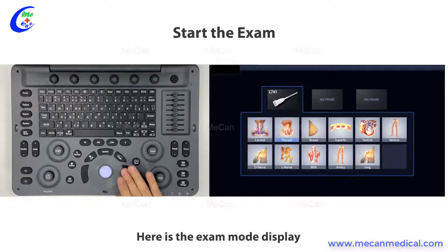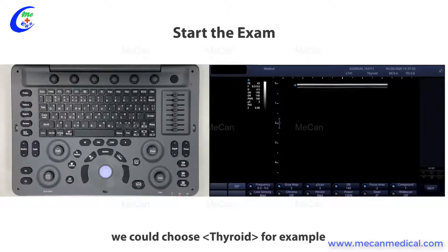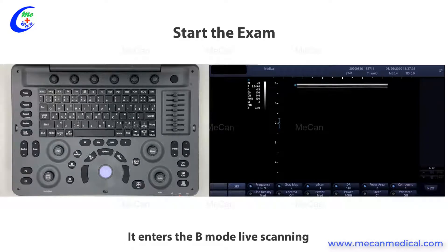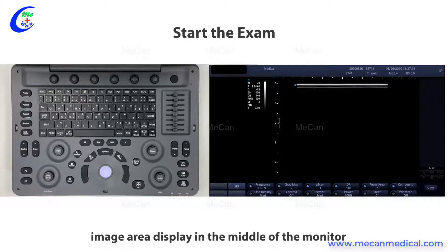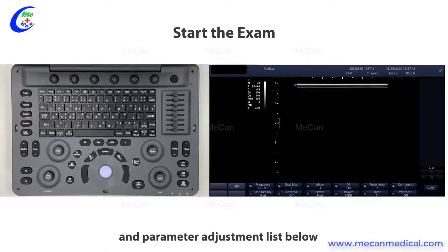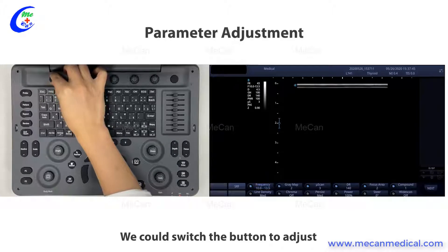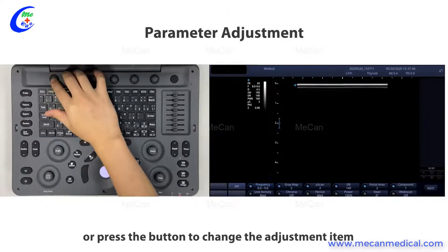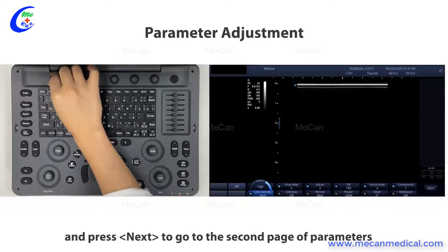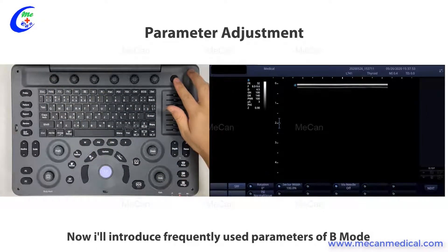Here is the exam mode display. We could choose thyroid, for example. It enters the B-mode live scanning, with the image area displayed in the middle of the monitor and the parameter adjustment list below. We could switch the button to adjust, or press the button to change the adjustment item, and press next to go to the second page of parameters.